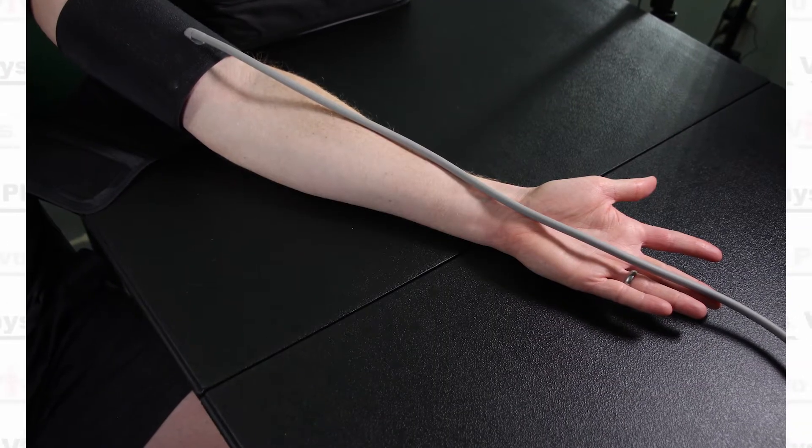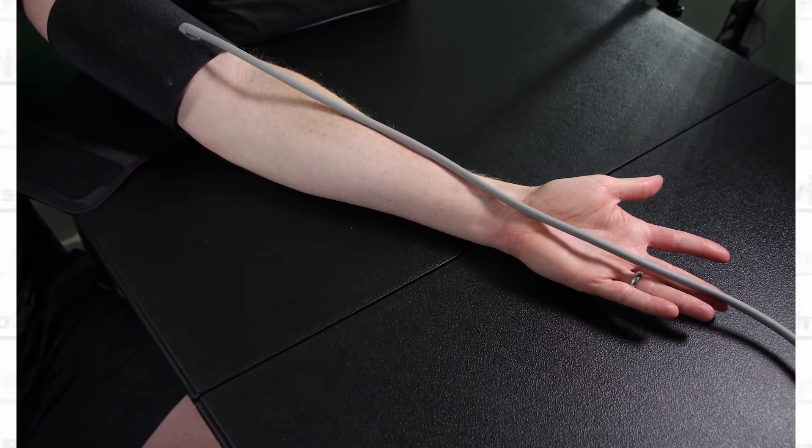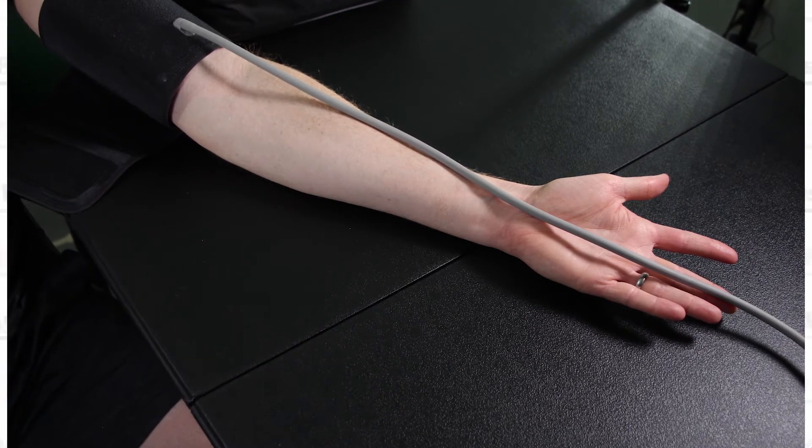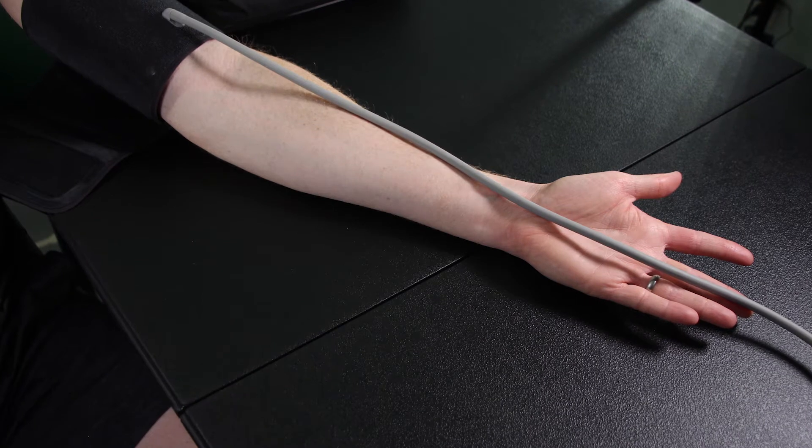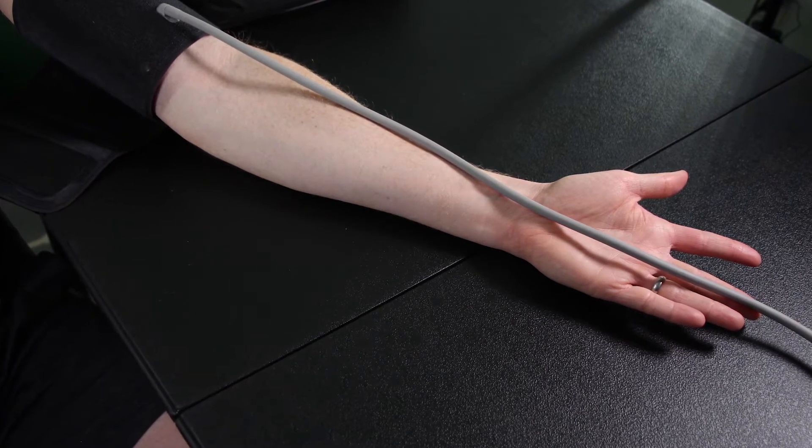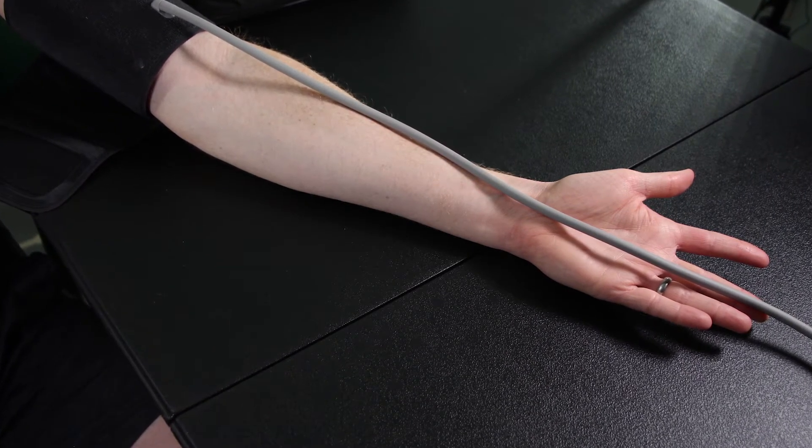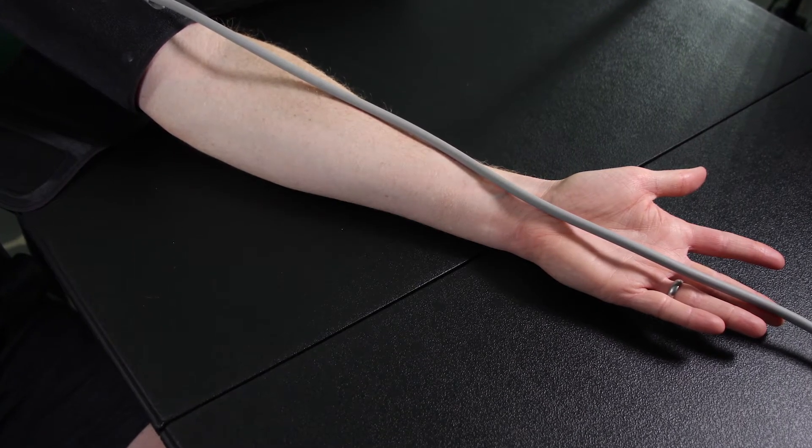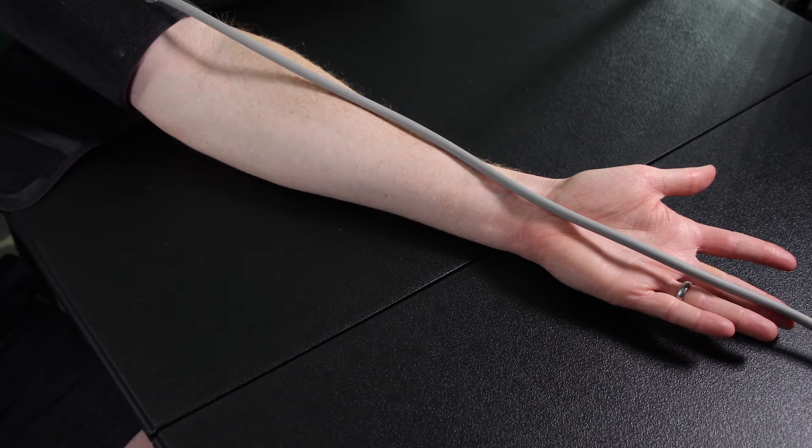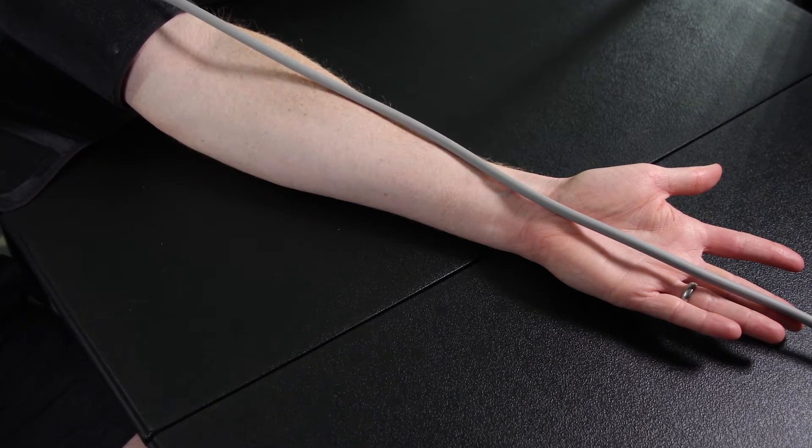Place the hand palm side up on a table or some other surface and have the tube go down your arm through the middle of your arm all the way down as though it was trying to basically come in contact with your middle finger. So draw a straight line from your elbow to your middle finger with the tube and that will tell you you're putting the cuff on properly for the left arm.